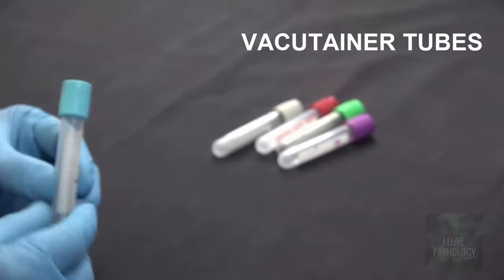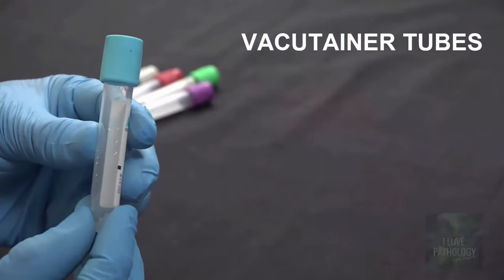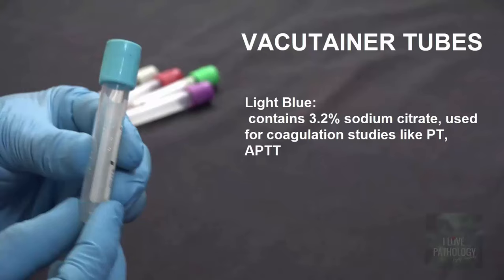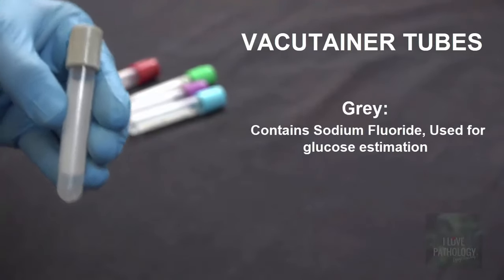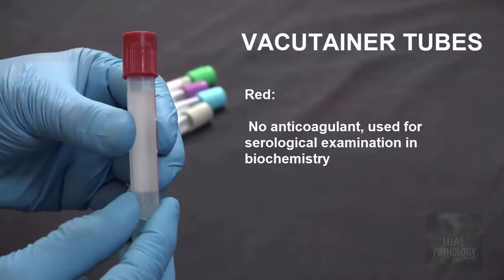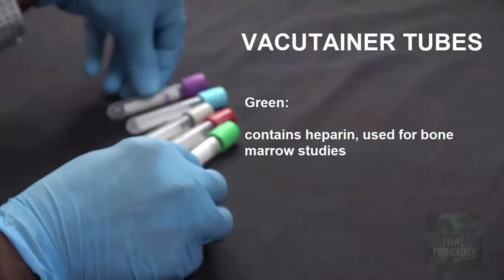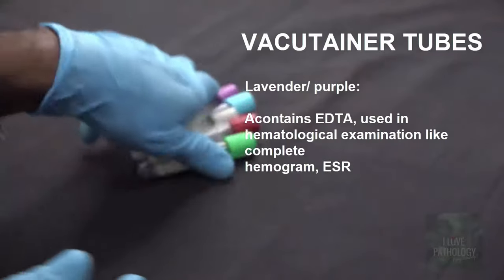These are vacutainer tubes, which are color-coded plastic tubes with a rubber stopper, basically used to collect blood for various investigations. The blue colored cap contains 3.2% sodium citrate as anticoagulant, used to collect blood for coagulation studies like estimation of prothrombin time and aPTT. The gray colored cap has sodium fluoride as anticoagulant, used for glucose estimation. The red tube has no anticoagulant and is used for serological investigations. The green one contains heparin and is used for bone marrow studies. The lavender colored cap contains EDTA as anticoagulant for hematological investigations like complete hemogram.